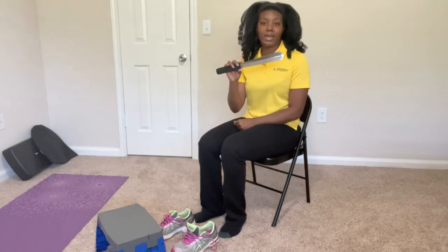In this video, I wanted to show you how to put on your tennis shoes using one hand. For this, you may need a couple of items — one would be a long-handled shoehorn, and the other, which I have right here, would be a step stool. You may or may not need the step stool, but it is something that may come in handy.